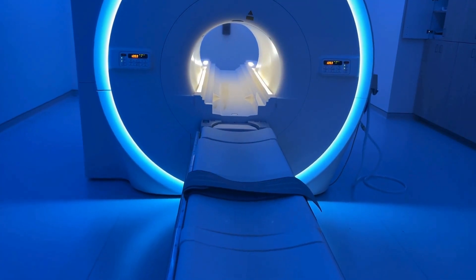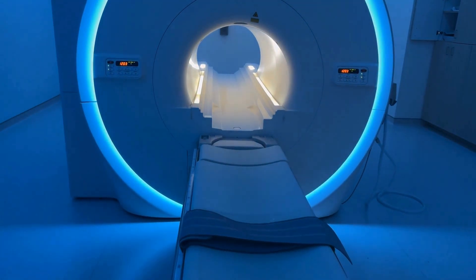I'm John Swenson, one of the partners here at Hampton Roads Orthopedics and Sports Medicine. We are introducing our new MRI, which we've just put in service this past fall.